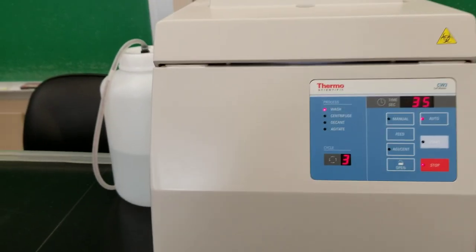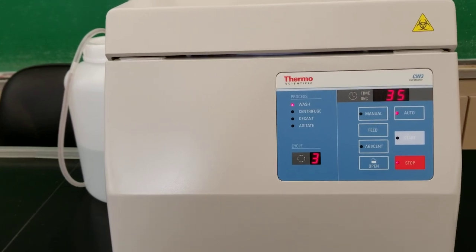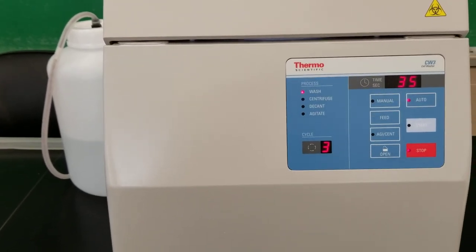Everybody, I'm so excited to tell you that we got a cell washer. We used it in class at the very end of the semester because that's when we got it in and it was really wonderful.